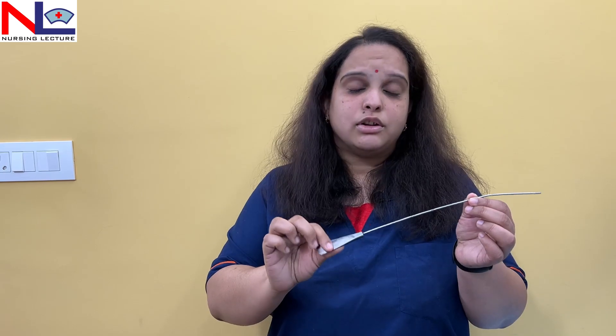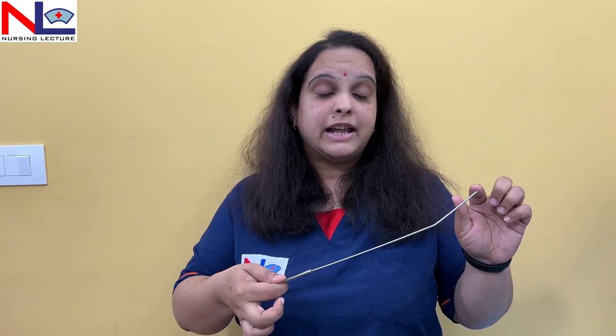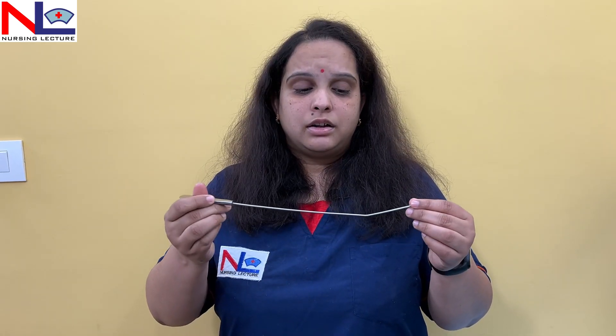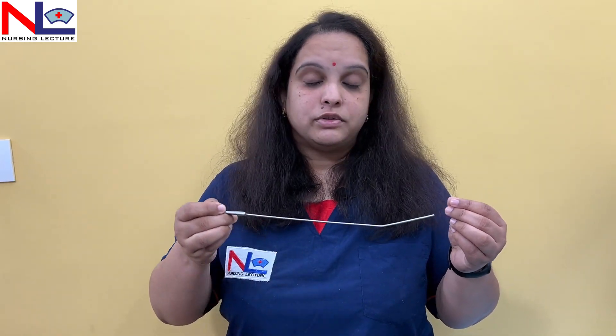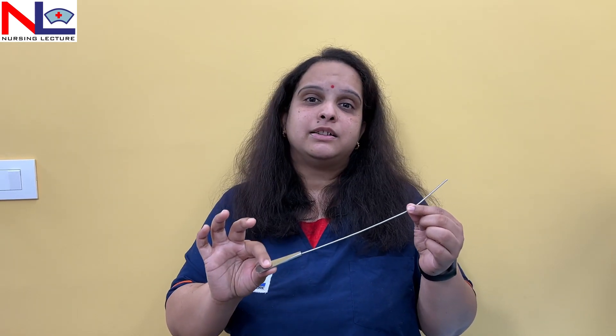The uterine sound also acts as the first cervical dilator since it is very thin. However, if introduced too forcefully, perforation can occur — it can perforate the uterine wall and enter the peritoneum, which can be dangerous. So it must be used very cautiously. It can also be used to identify missing IUCDs; if a copper T or polyp is present, the instrument will touch it and we will feel something — that is why it is called a uterine sound.